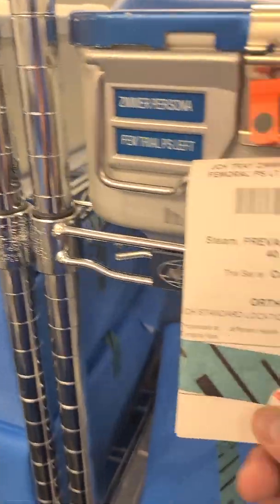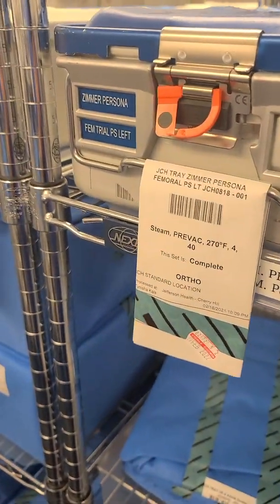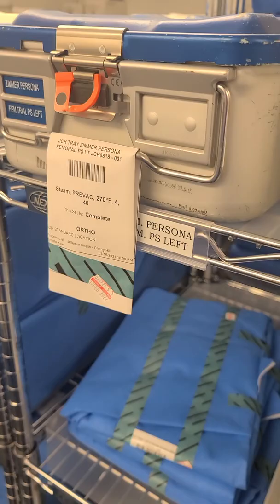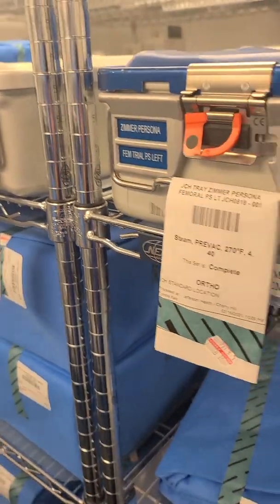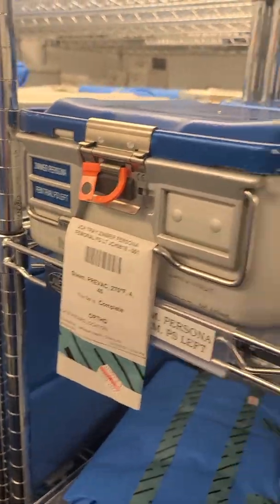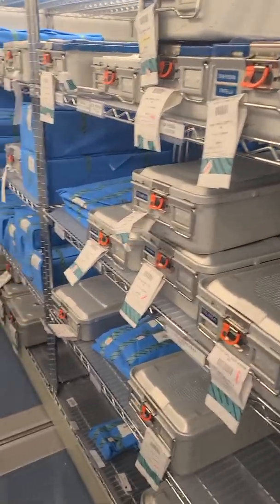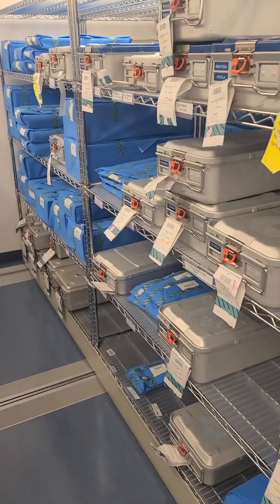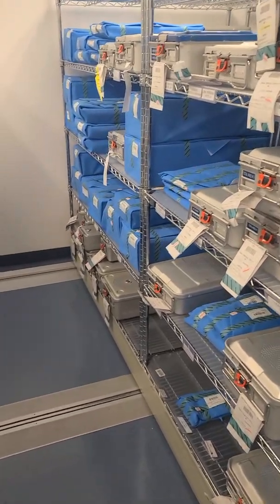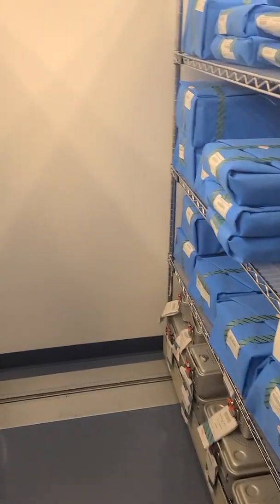You would put a six-month expiration stamp on it. Also consider the expirations of filters, locks, and — believe it or not — external indicators, which have an expiration date. You should be looking at the lot number of all your external indicators to see what expiration date they have. If they expire at a certain time, that should be the expiration of the actual item itself.